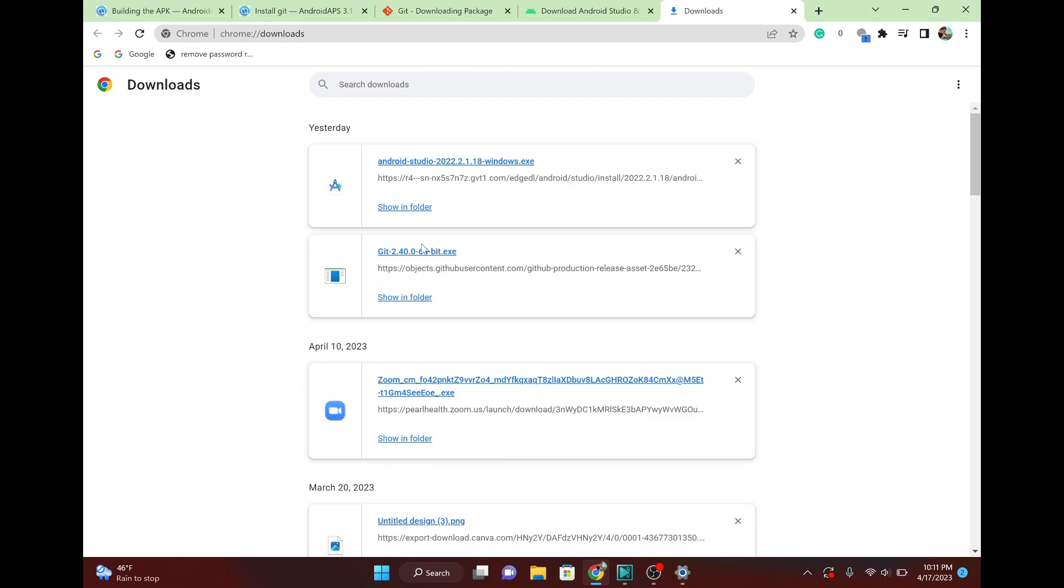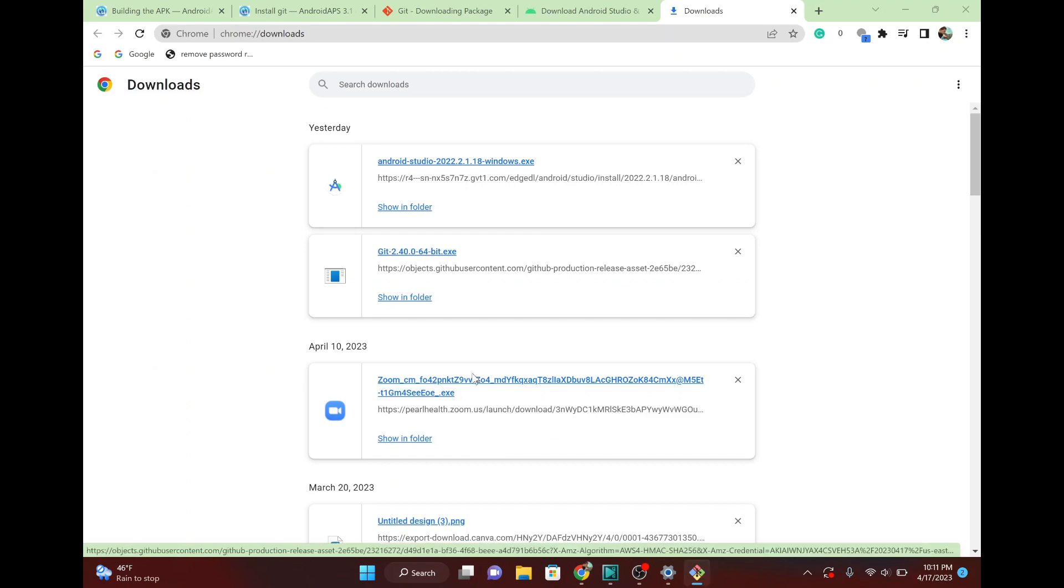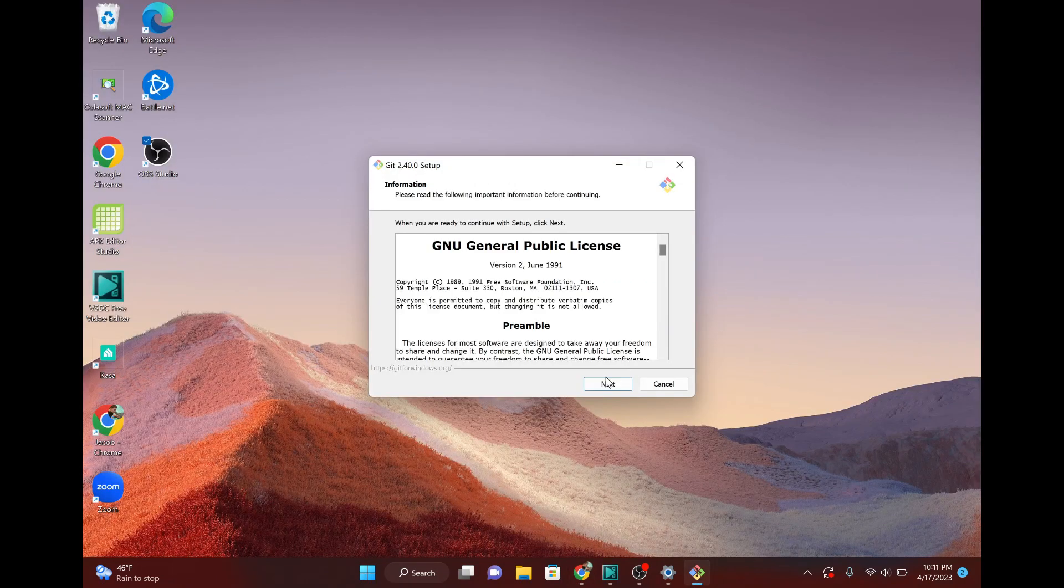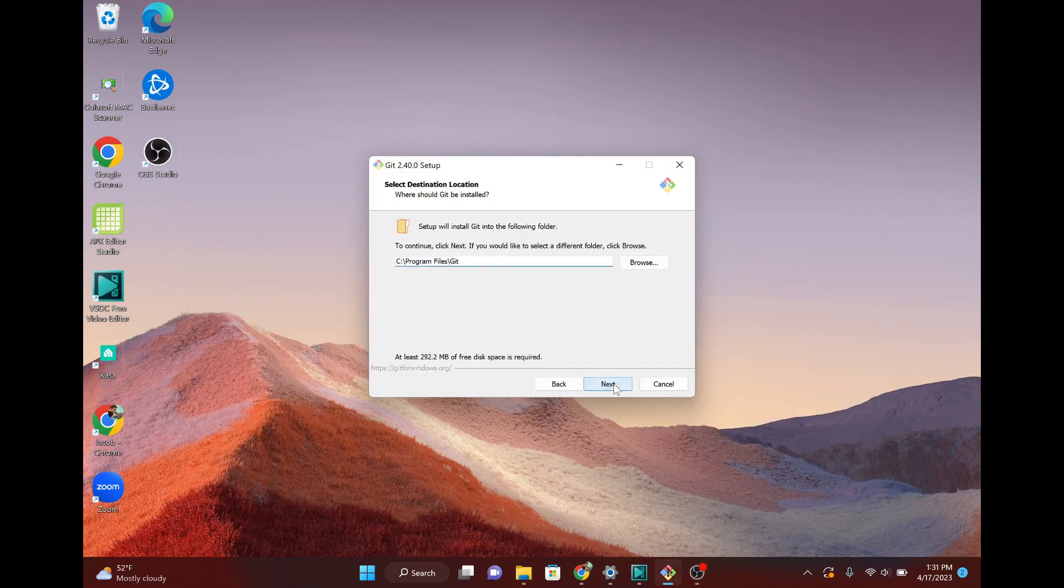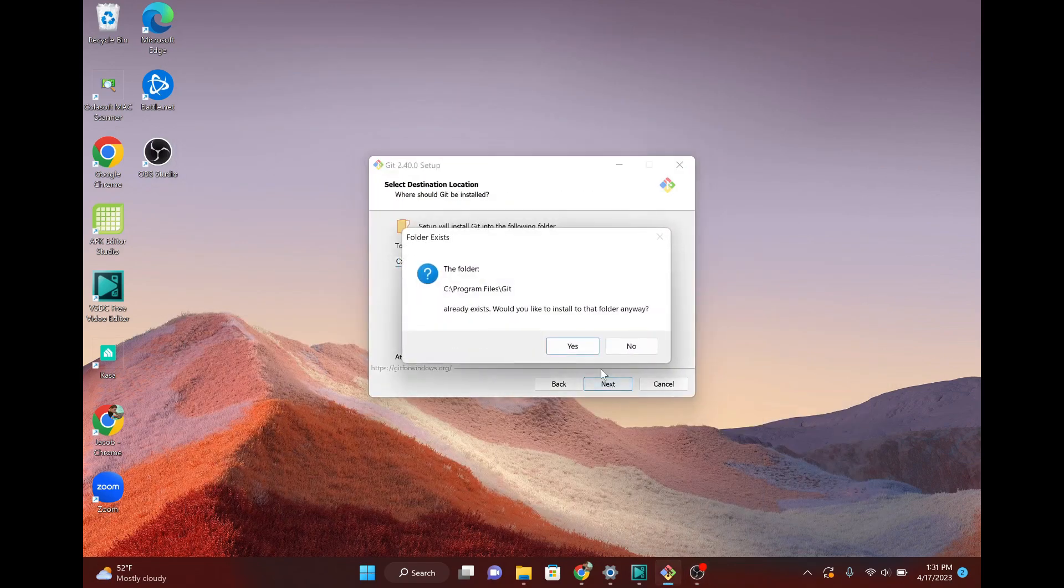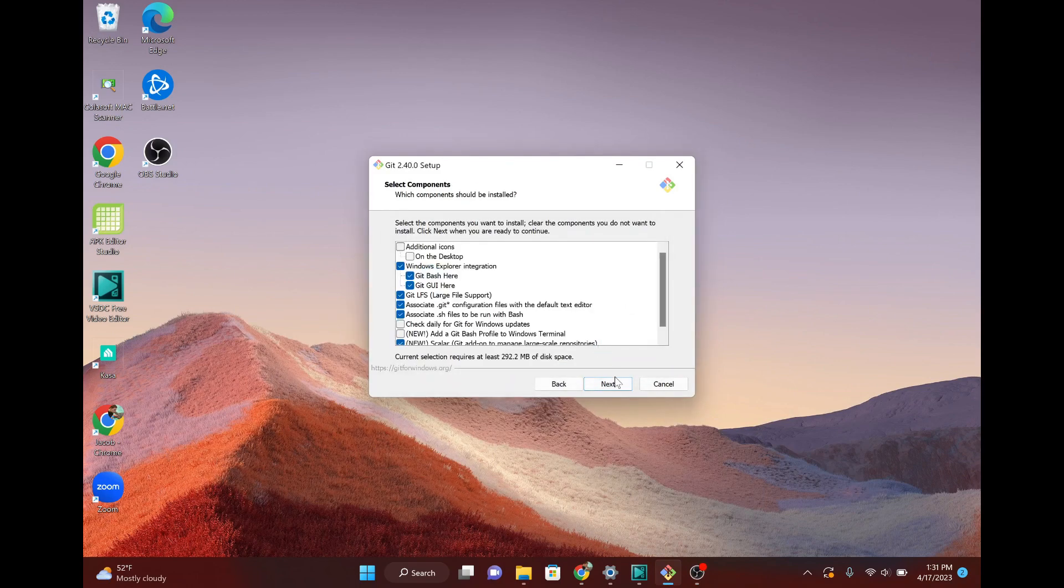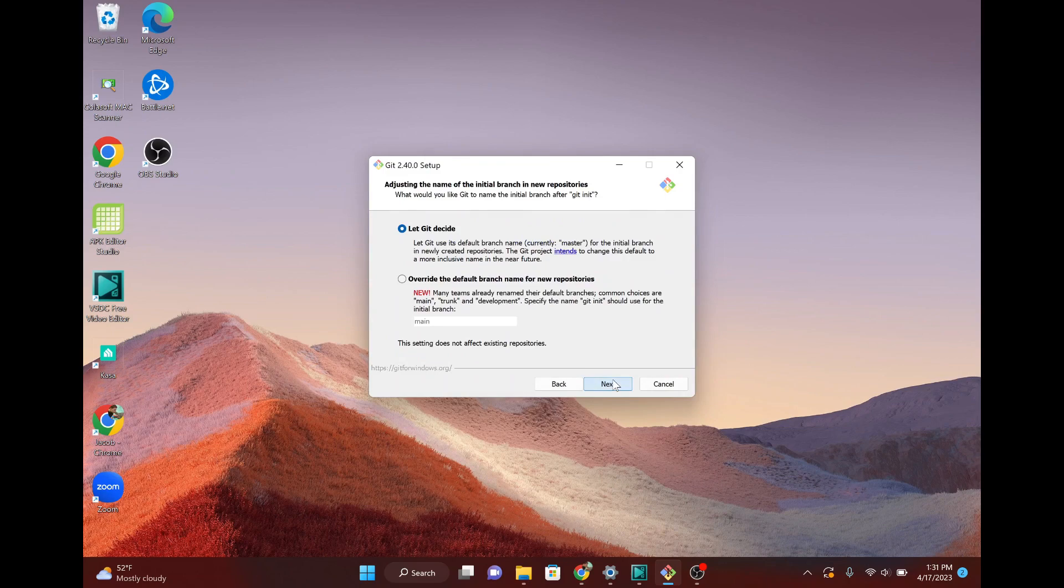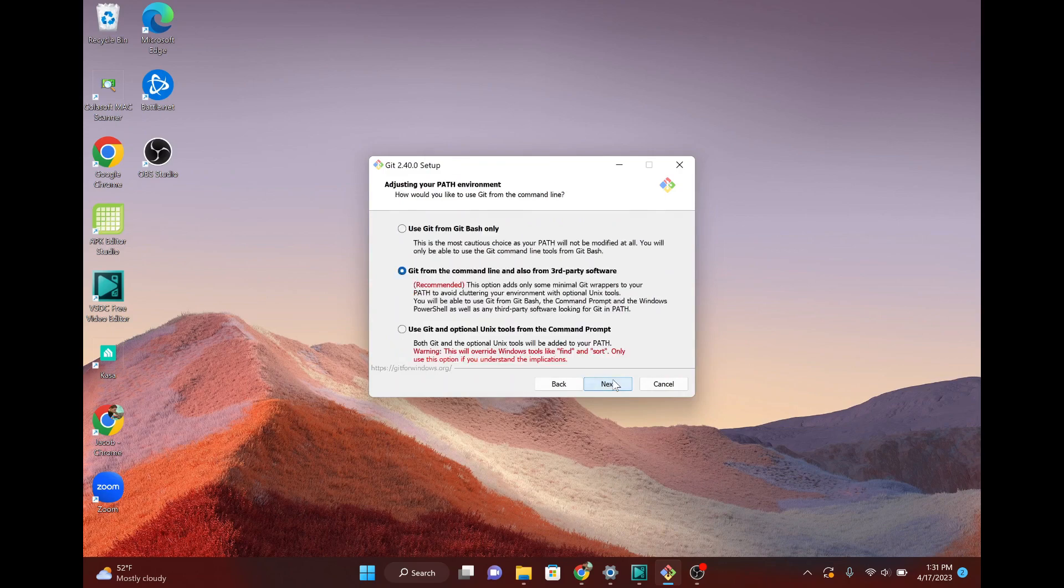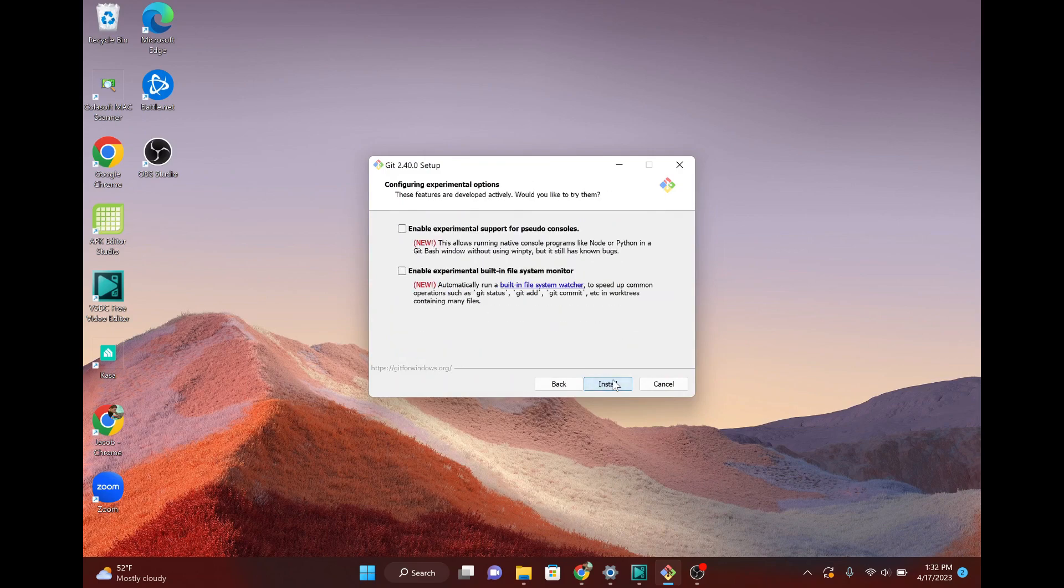So anyways, go ahead and install Git first of all. And wait until Git is all the way installed before you do anything with Android Studio. And we'll just let Git do the thing. And you're not going to change anything. I have this just because I had it previously installed, but you probably won't see that. Not a big deal. You're not going to change anything. Just set next pretty much through everything here. Let it run. Let it do the thing.